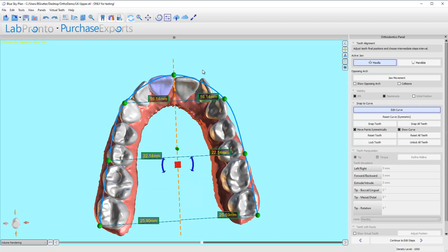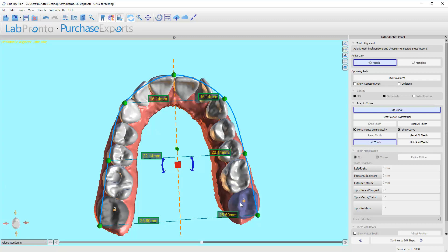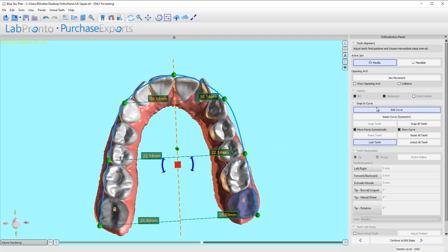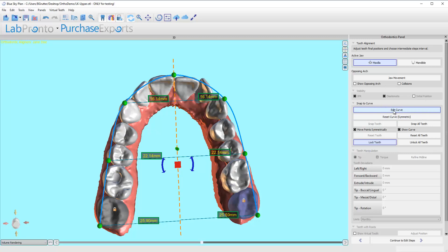What I'm going to do here is I am now going to right-click on these last molars because most cases I want some anchor teeth. That's a treatment planning thing—you do what you want to do—but I'll just tell you that I typically want to lock some teeth so that every other tooth can work in relation to those teeth. I find that works for me more predictably. I want these to disappear, so I'm going to click on this so now I can move teeth.